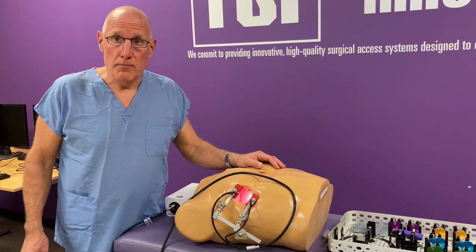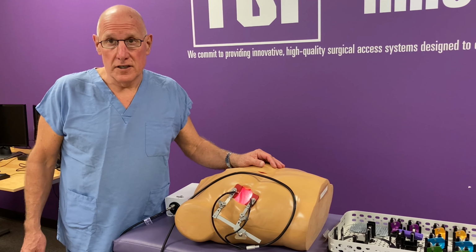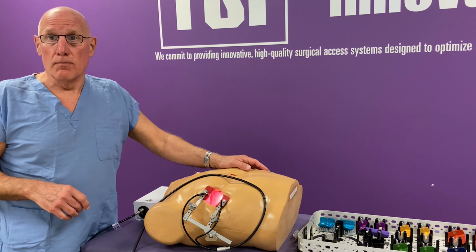So just to recap the important features of the ULTRAVISION CT thoracic access system, it comes with a wide selection of blades, and it actually includes flat blades, which are used for small upper sternotomy incisions. So wide selection of blades that conform to the incision and conform to the ribs to reduce the potential for trauma. The pivot function, which allows you to spread less, also reducing the potential for trauma. And incredible integrated light for more visualization.